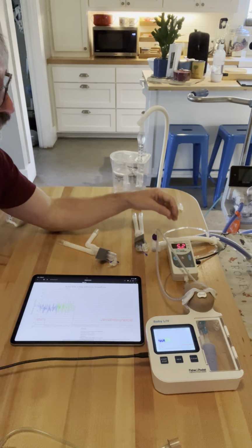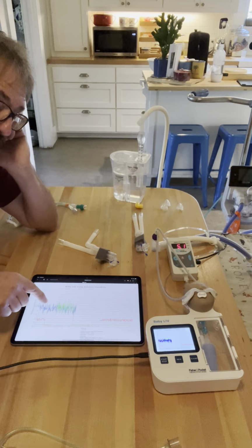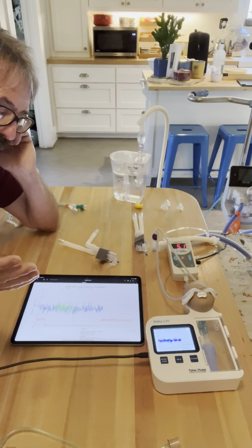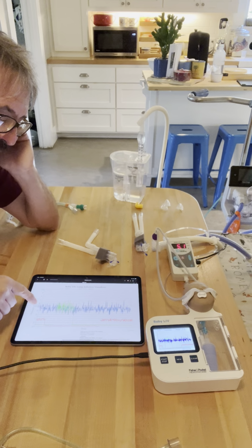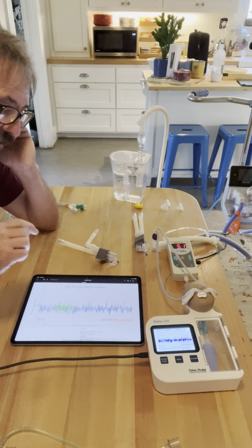And they do. Again, we're coming in at 5.1, and the purple Optiflow is now coming in blue. My system just won't clear out, but that's okay. I'm going to be able to talk you all through it. The blue is coming in at 5 centimeters of water pressure and is laying over the ram.